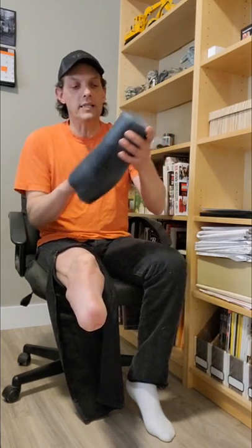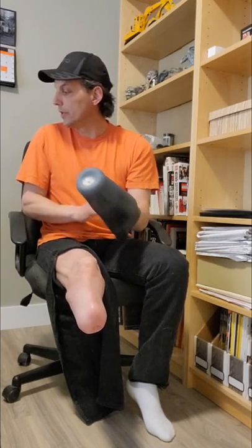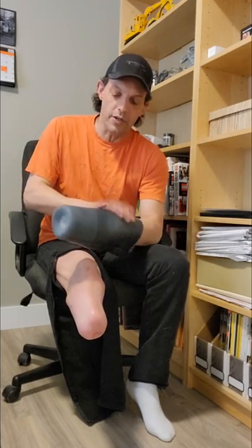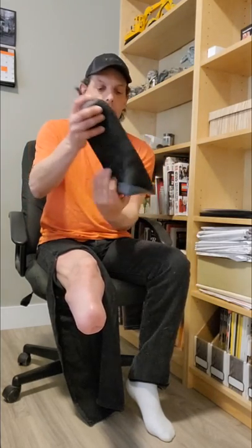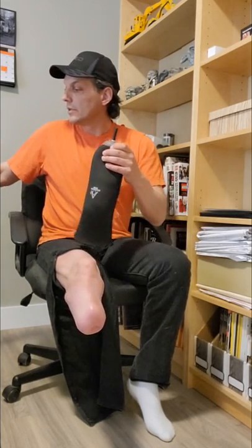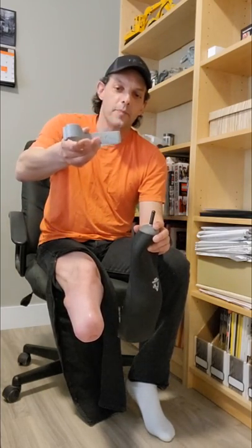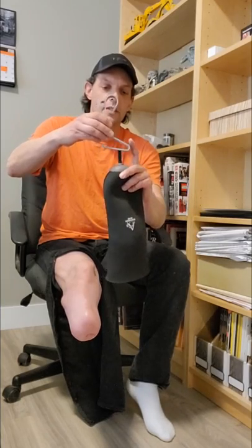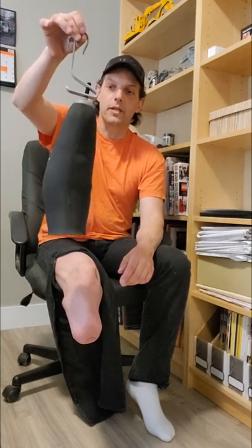Typically at the end of the day, once my leg comes off, I take off my liner and hit the shower. While the liner is inverted I'll wash it with some hot water and soap, then pat it dry with a clean towel and turn it back right-side out. It's easy with a pinlock because they give you these little liner buddies — they lock onto the pin and you can hang it wherever you want to keep it nice and clean.